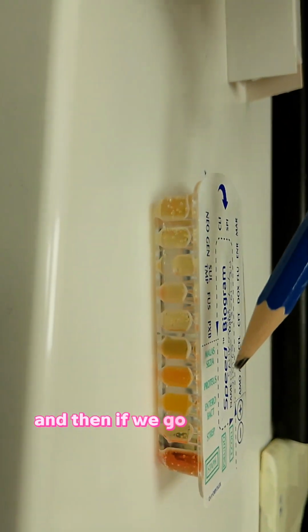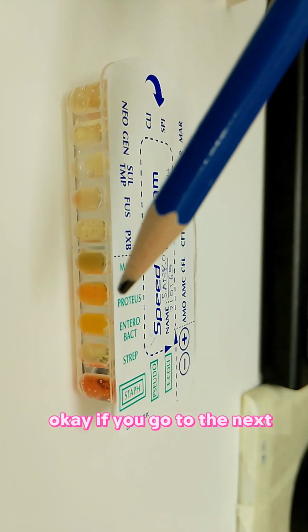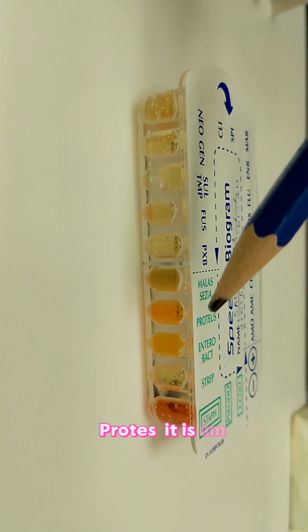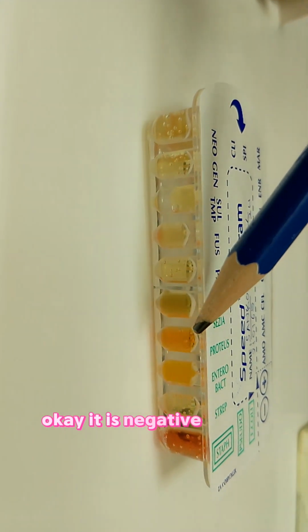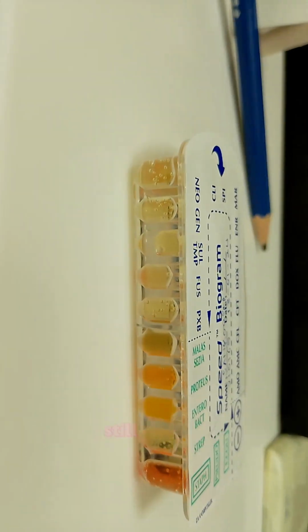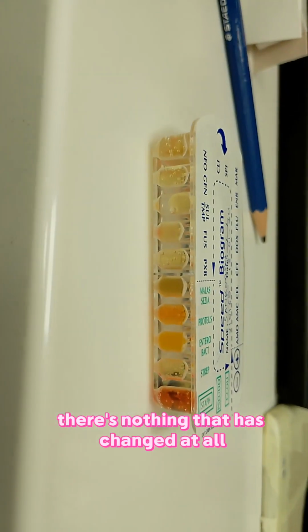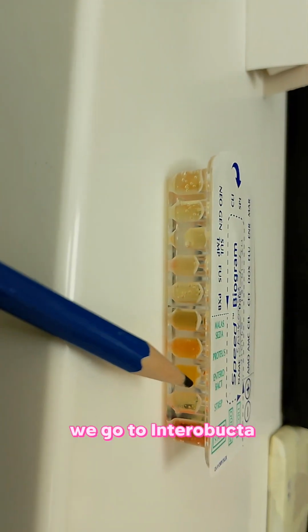And then if we go to the next one, that is Proteus. Proteus is negative, because the color stays the same, there is nothing that has changed at all. We go to Enterobacter.